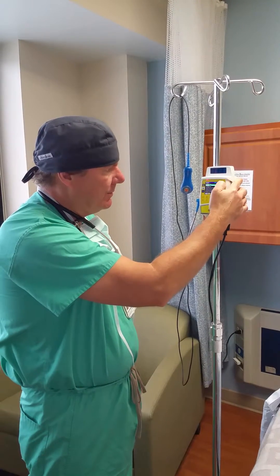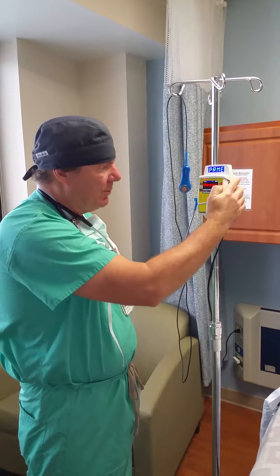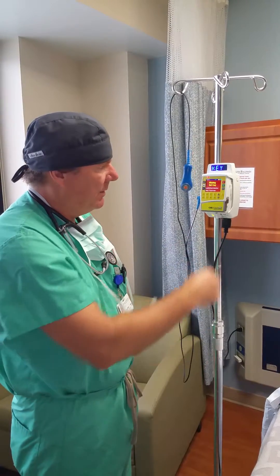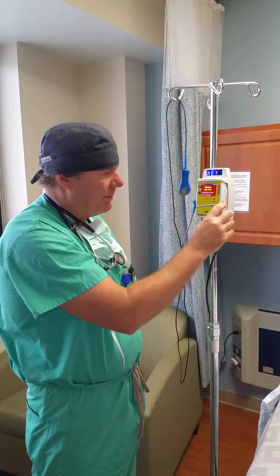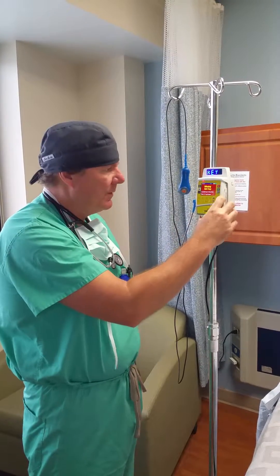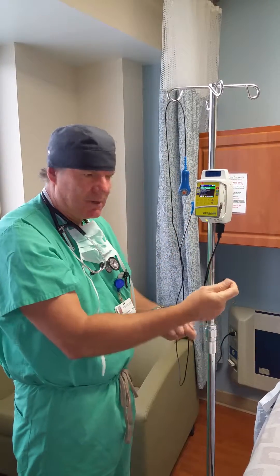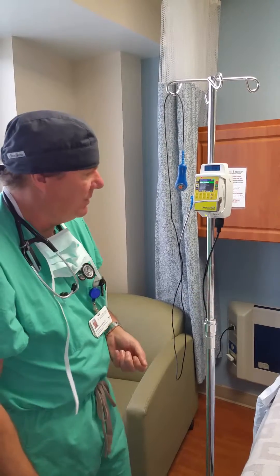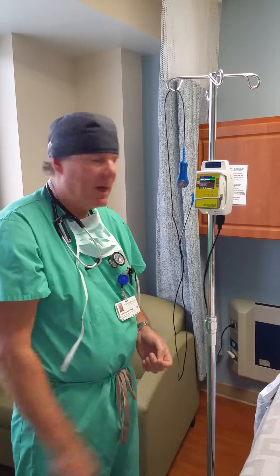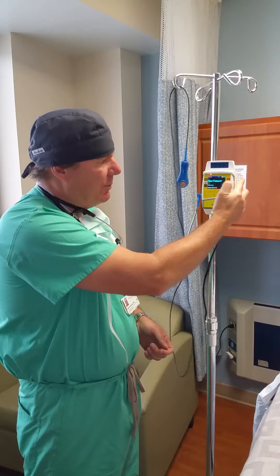We went back there, so we'll stop that, go back to prime, and hit yes — we want to prime. It's telling me it's not ready because we don't have tubing in here. But once we get past the prime, you have the local anesthetic go all the way through the tubing, then hook it up to the patient.